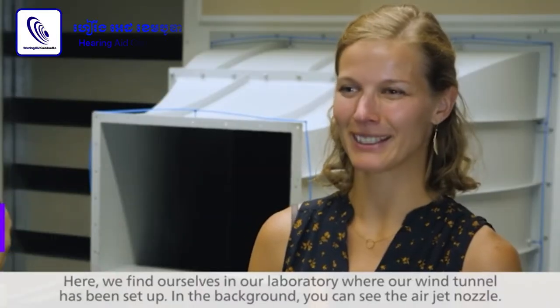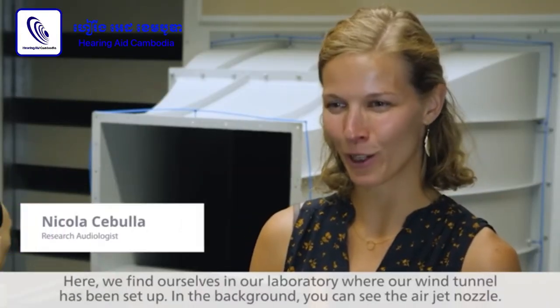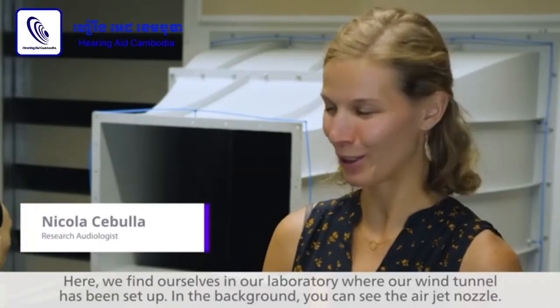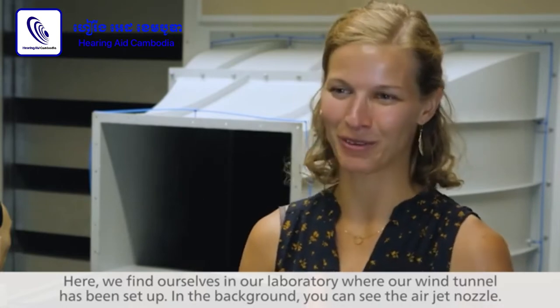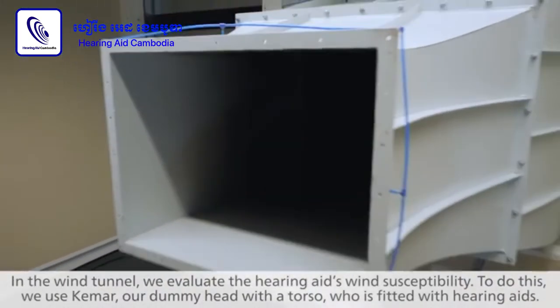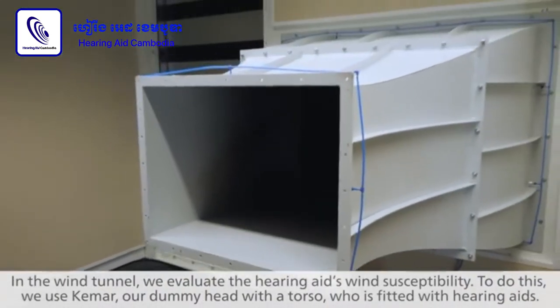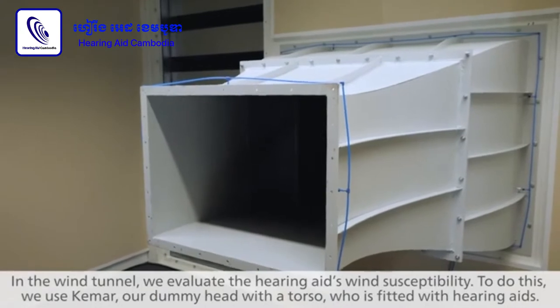Here, we find ourselves in our laboratory where our wind tunnel has been set up. In the background, you can see the air jet nozzle. In the wind tunnel, we evaluate the hearing aid's wind susceptibility.